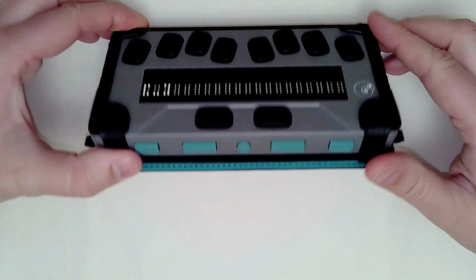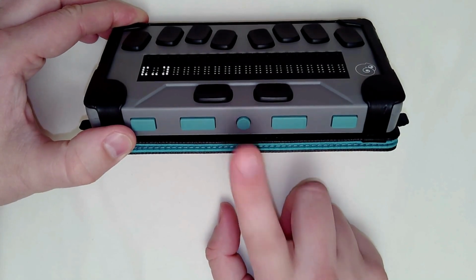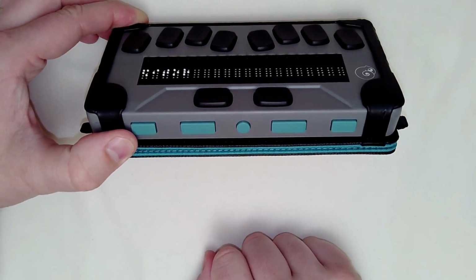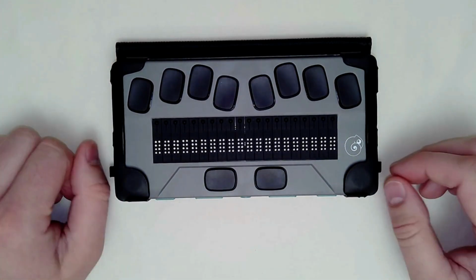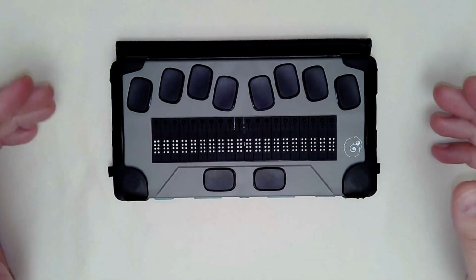The second way of doing the exact same thing is that little round button on the front edge in the center of our device. If we click that, there we go. It's taken us back to our main menu, which I hear editor, and I happen to know that editor is the very first item on the main menu. So voila, I'm there at the top of the main menu, and that's taken me back home. Okay, so 2 different ways to go home or back to your main menu. Great, so now we know how to get around.